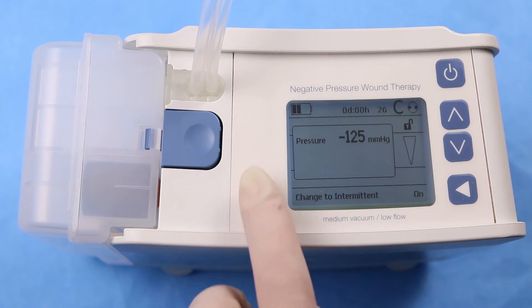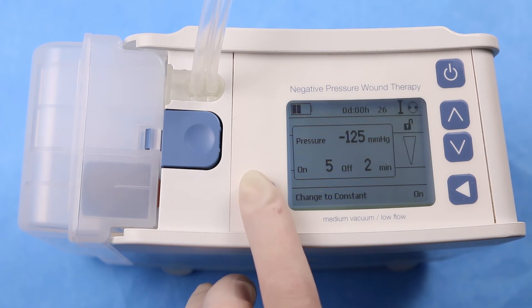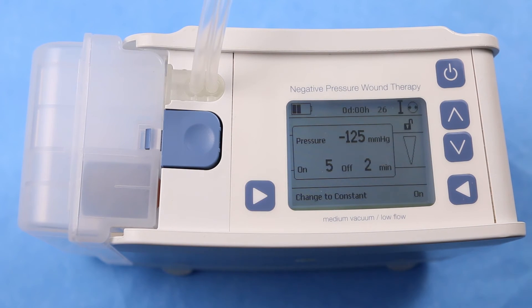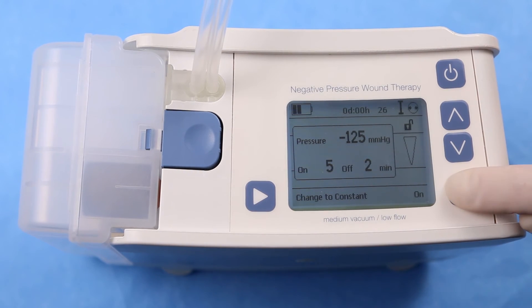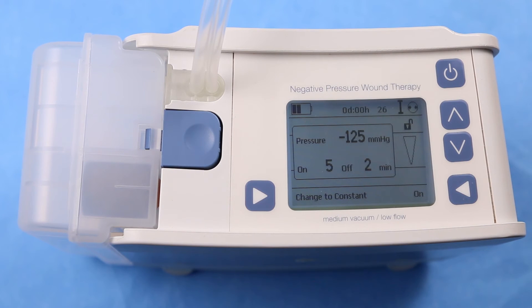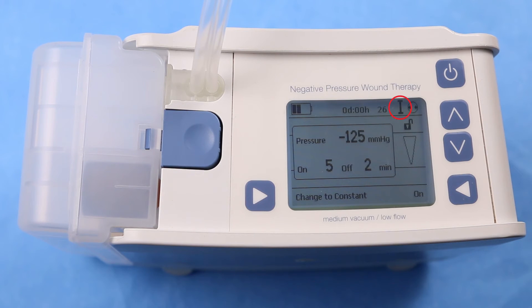To change from constant to intermittent, press 'change to intermittent' and then press on. Intermittent mode is indicated on the screen with the letter I.